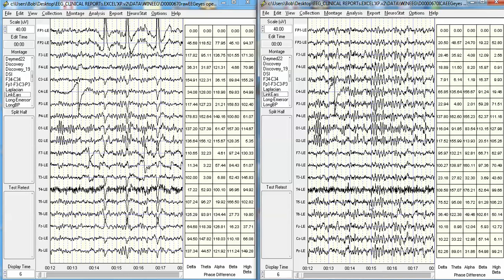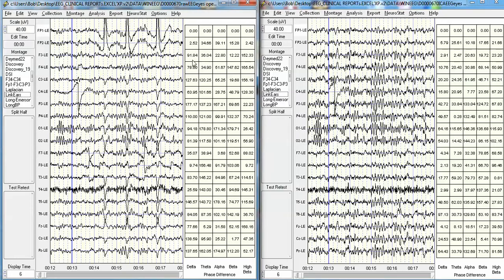I'm going to go to the part of the record where you can see the same event — selecting 13 seconds exactly. For example, F3-FP1 shows 91.84 degrees in the original, but only 2.91 degrees in the reconstructed — that's a huge difference. None of the numbers in the ICA-reconstructed time series yield the same time differences or phase differences as the original EEG. This means the phase and time differences between different parts of the brain in the original EEG have been adulterated — obliterated. Once these time differences have been altered and manipulated to such an extent, the reconstructed time series is no longer a valid representation of the patient's brain. It's been disconnected.